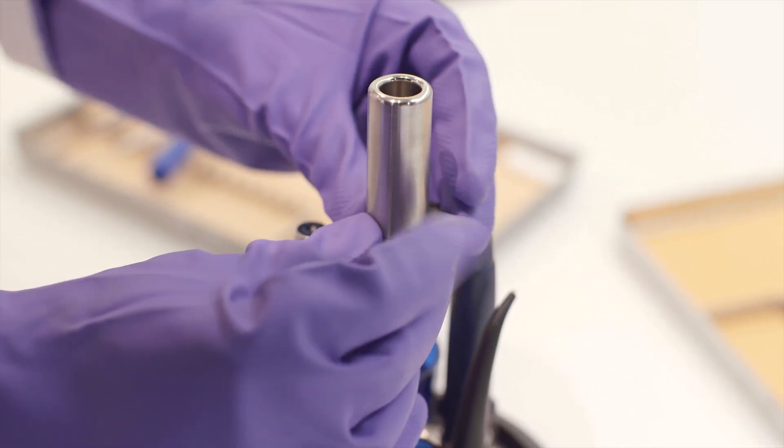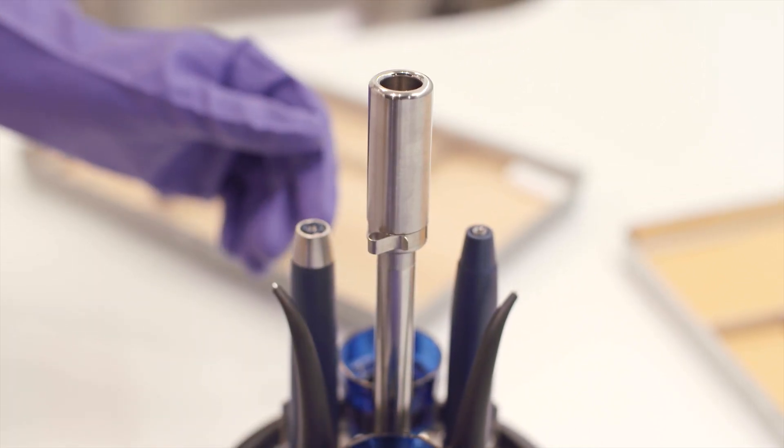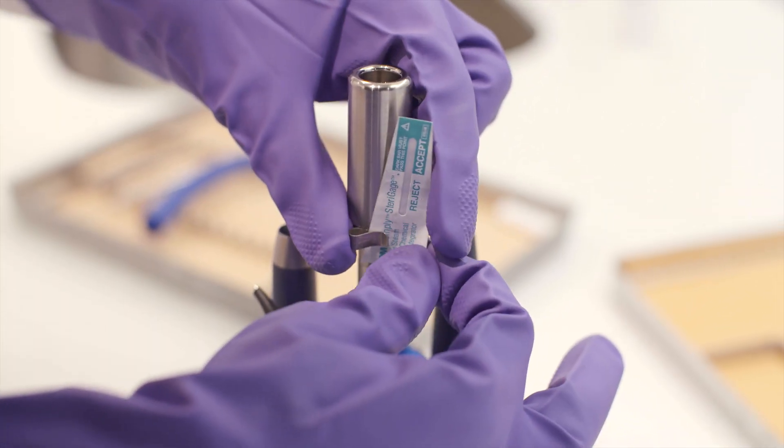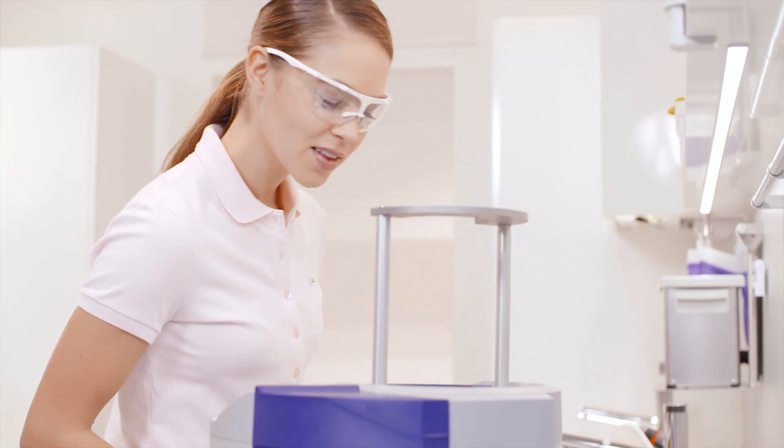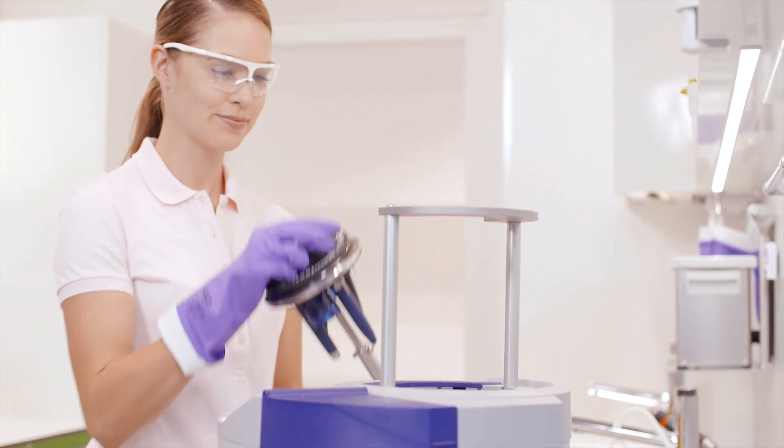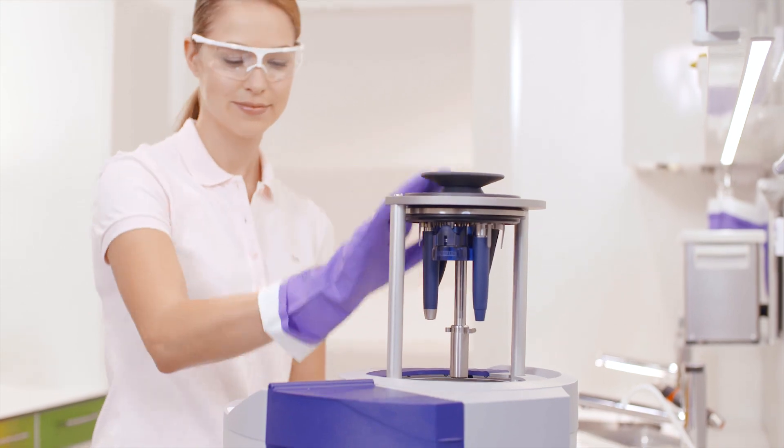A Class V chemical indicator is also clamped to the center column of the flex lid. Then push the lid as far as it will go into the holder. The instrument should point downward.